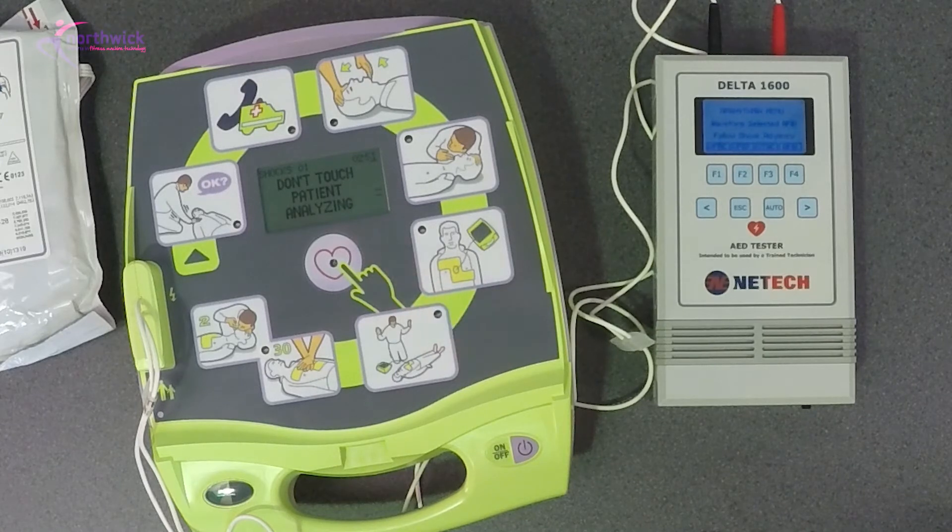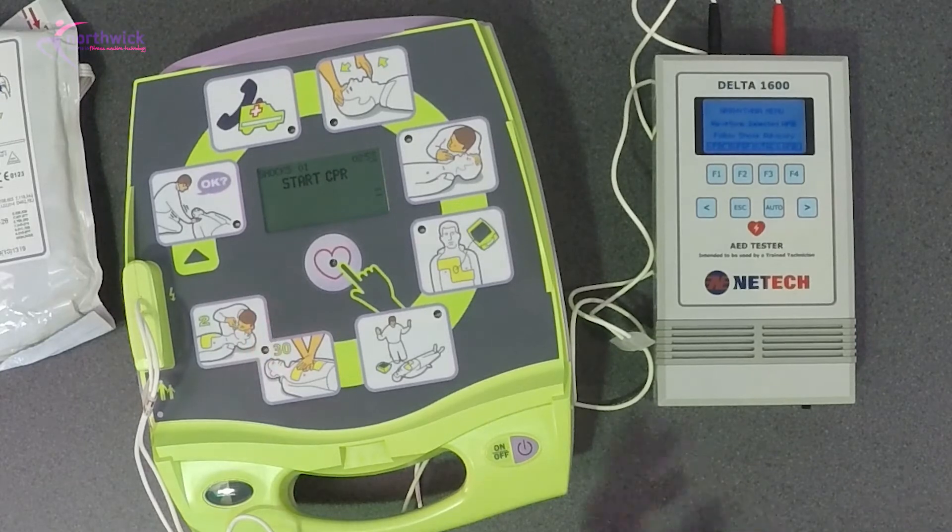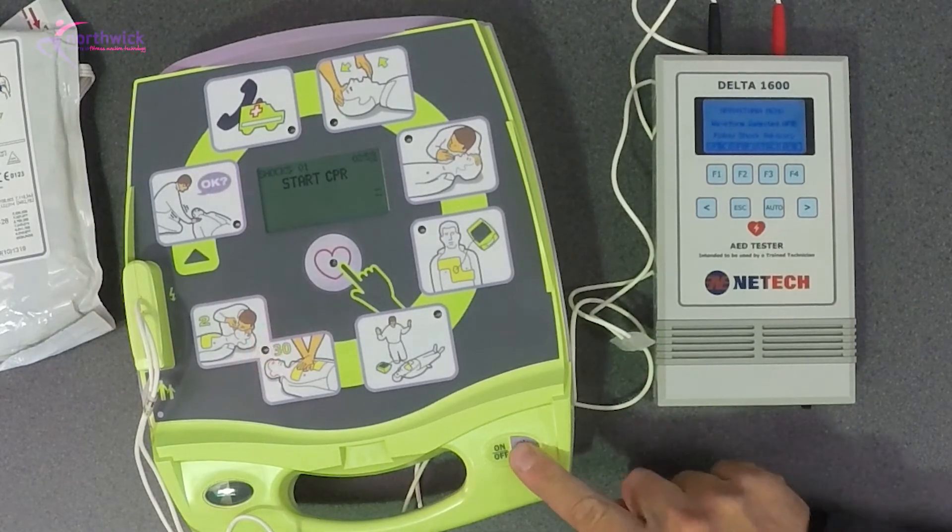Don't touch patient, analyzing. No shock advised, start CPR. Okay, so that's really important. I want to turn this off so that I can just talk with you without this thing interfering.